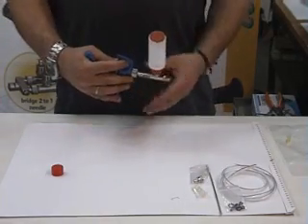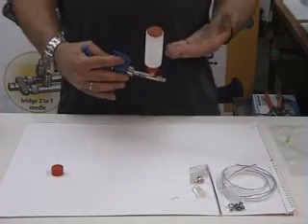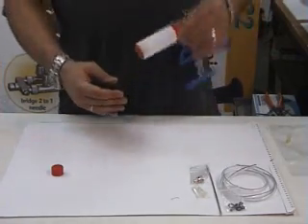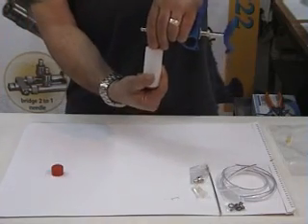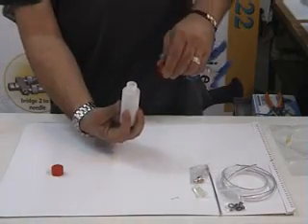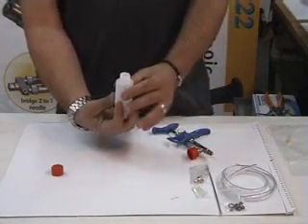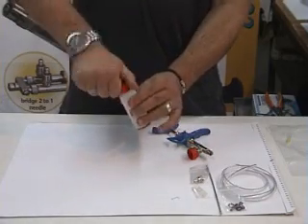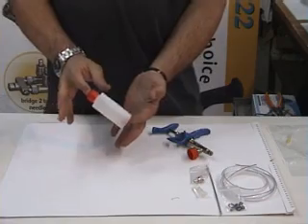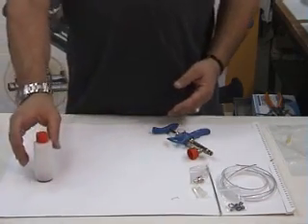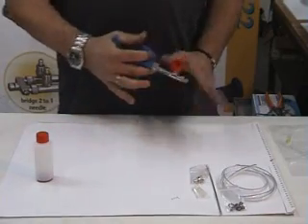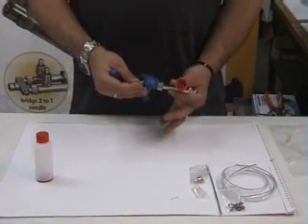In the end of the day or in the end of the injection, if any vaccine is left in the feeding bottle, all you have to do is turn it upside down, hold the plug in the top, unscrew it from this plug and put that plug on it. You can preserve the leftover vaccine for the next injection in the fridge or wherever you like, and that syringe you can clean it as you used to.